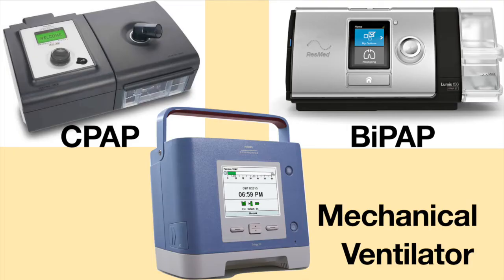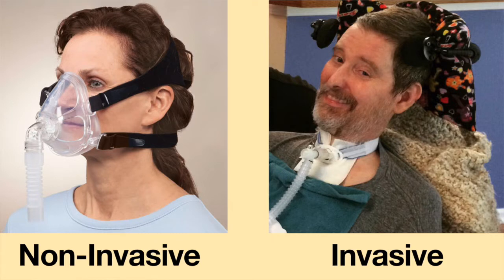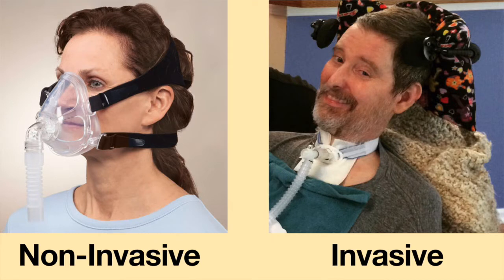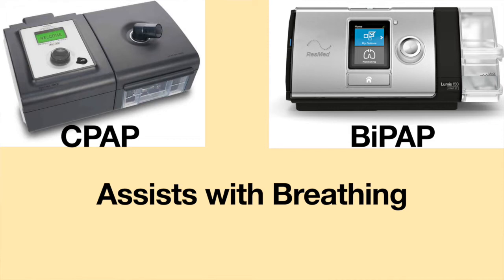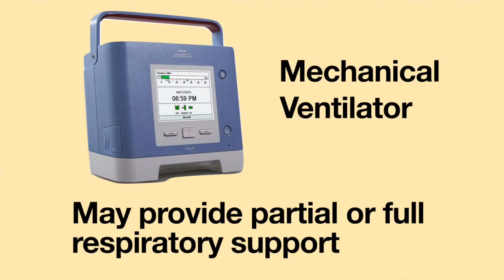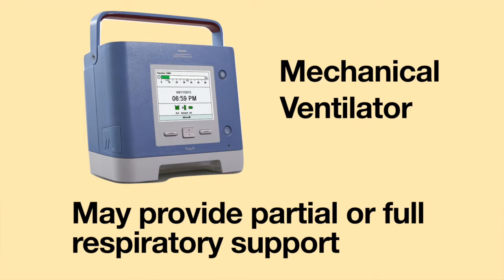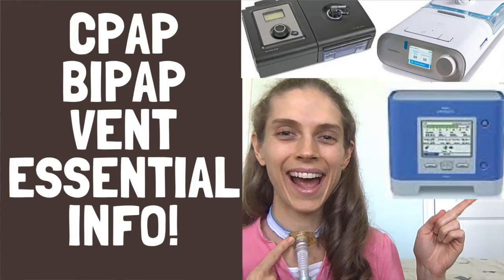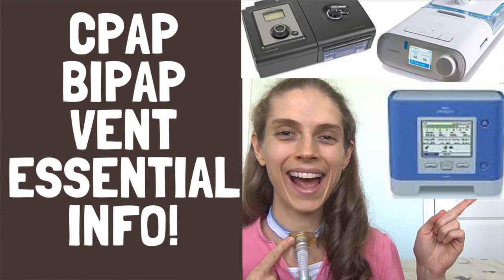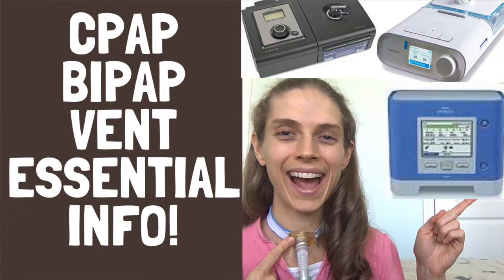CPAP, BiPAP, and mechanical ventilation can be used with either a non-invasive or invasive interface. CPAP and BiPAP ventilation assist with breathing, while mechanical ventilators may provide partial or full respiratory support. For more information about ventilators, please see the video on CPAP, BiPAP, and mechanical ventilation essential information.